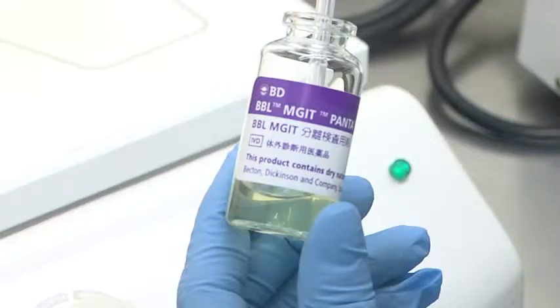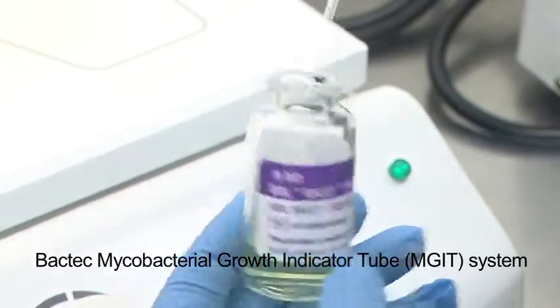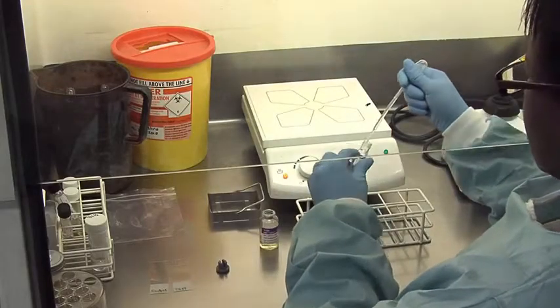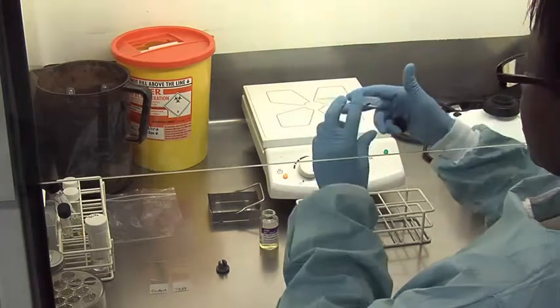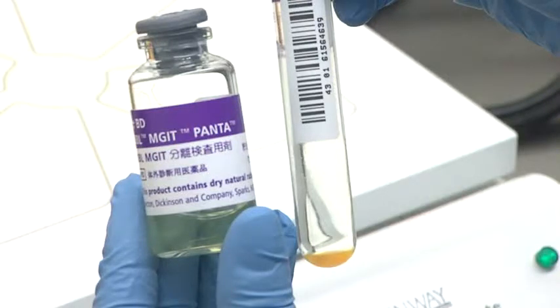The final buffered deposit is inoculated into a liquid culture media and a solid slope culture media. The liquid culture media is a commercial-based system for mycobacterial culture. It is known as the BACTEC Mycobacterial Growth Indicator Tube System, with the acronym MGIT or MIDGET. The MIDGET tube contains a modified Middlebrook culture broth and an antibiotic supplement. Growth of mycobacteria depletes the oxygen present in the medium.